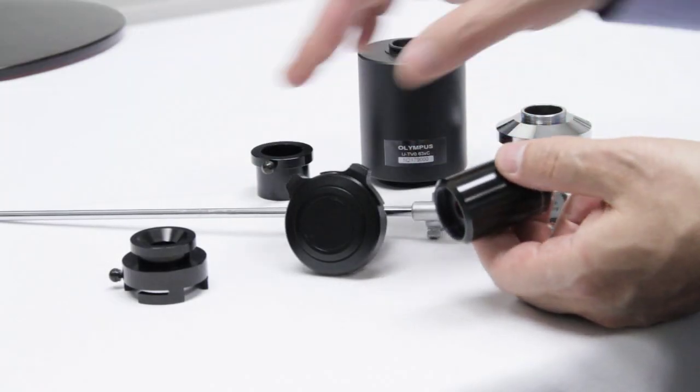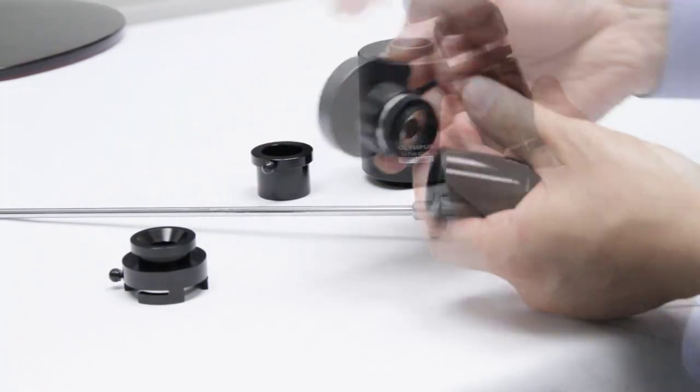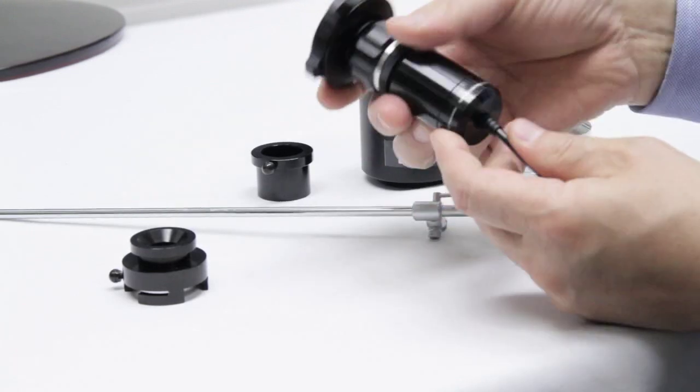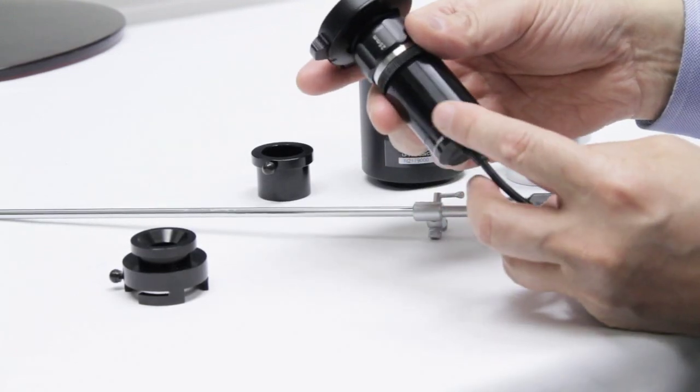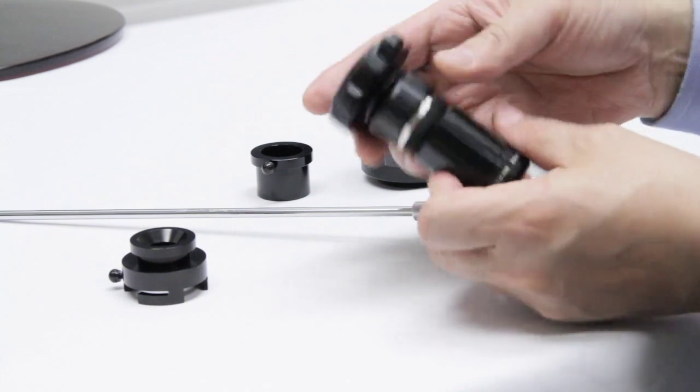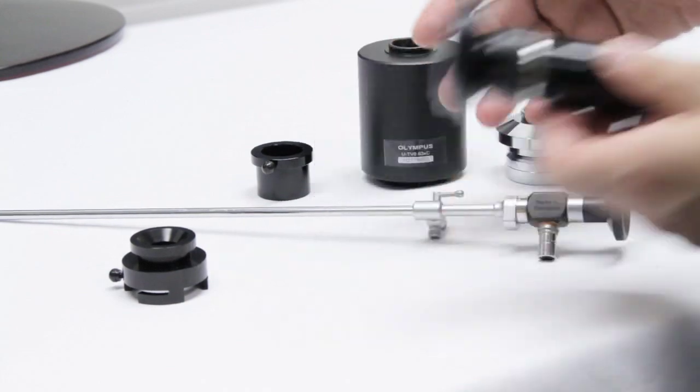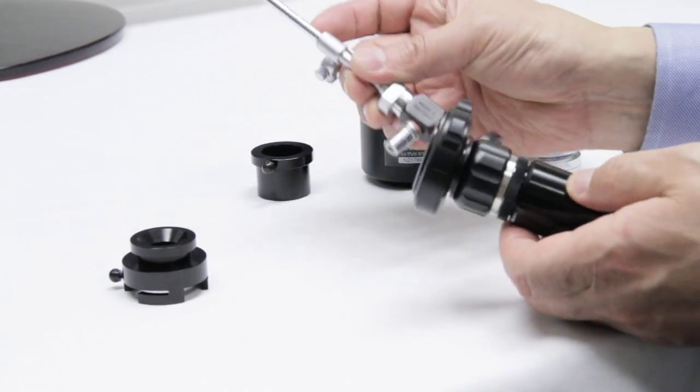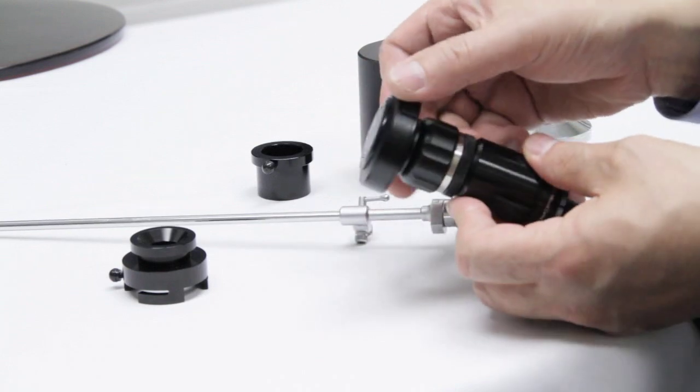The AM423C or CT are almost the same model camera. The AM423CT comes with a micro-touch trigger to capture images. So if you have the endoscope connected, you can simply capture images with the micro-touch instead of reaching for a keyboard or mouse.